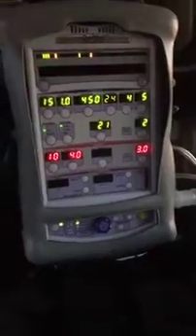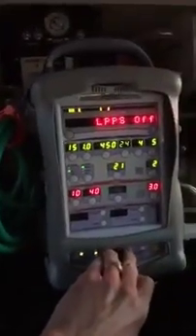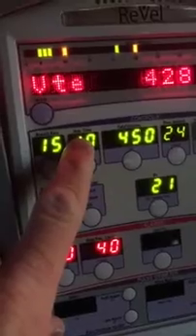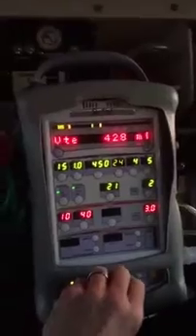We don't want a rate of 40. Okay, so this is where we're going to start. I:E ratios — what are they? It's basically a correlation between how long the ventilator is delivering an inhalation versus how much time the patient is allowed to exhale. I have my respiratory rate set to 15 breaths per minute, and my inspiratory time — or I-time — set to one second. Tidal volume is 450, and the exhale tidal volume is 430, so there's a little bit not coming back out — that's fairly normal.